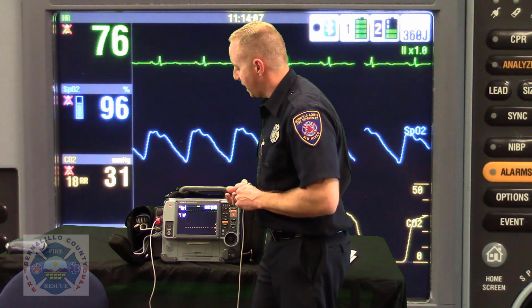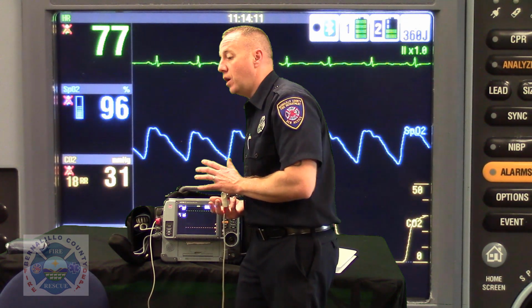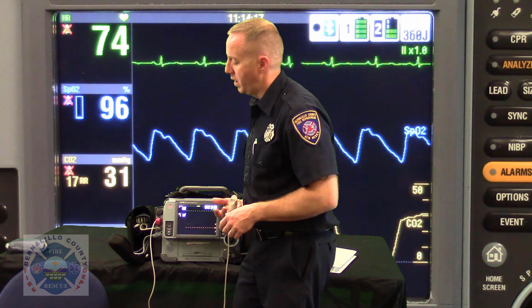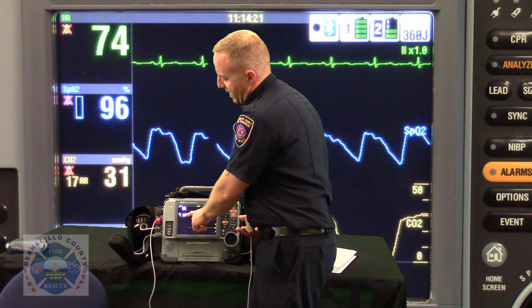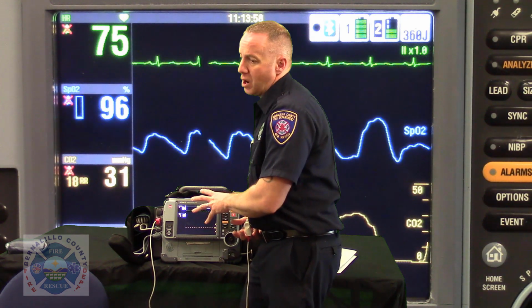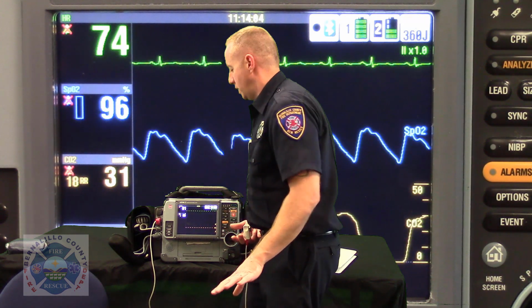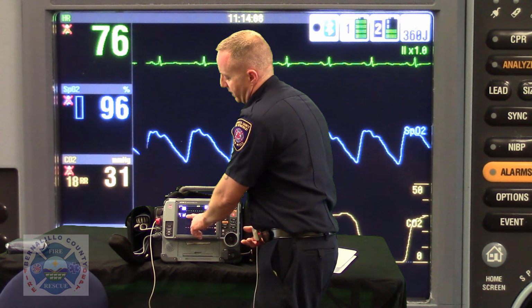Now, what's nice about the LifePack is that anything 10% and over is clinically significant. If you and I are seeing an SpCO reading of 10% or over, when you power this thing on and apply the probe, this is going to flash red and it's going to say 10%, and it's going to give you a little alarm that says, hey, look at me. If it's under 10%, the monitor says insignificant. You'd rather monitor the patient's pulse oximetry reading, so it's going to leave it on this screen.